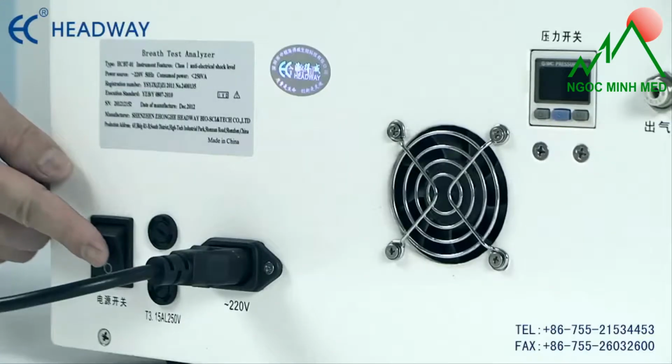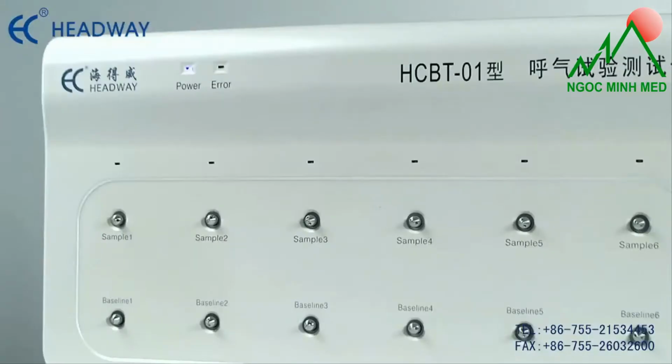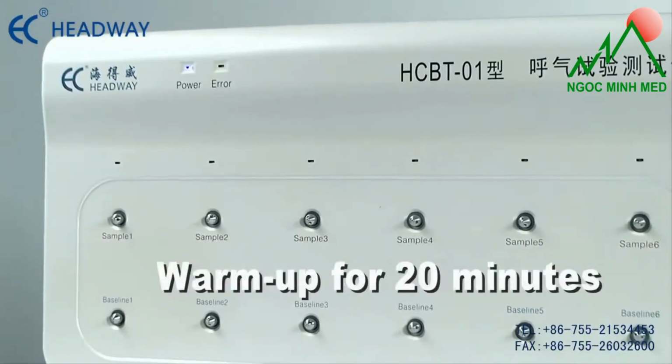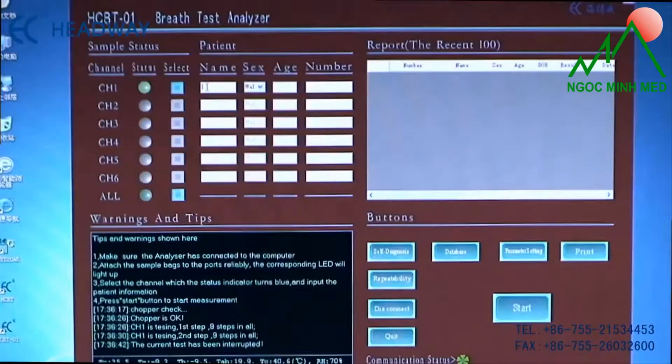Warm-up and self-inspection. 1. Warm-up. When connected with the AC power supply, the device will warm up and adjust all system temperatures automatically. It takes about 20 minutes. A different environment may extend or shorten the warm-up time slightly. If you open the software and connect with the host machine during the warm-up process, the main interface will display current status information in the warning and prompt window in real time.